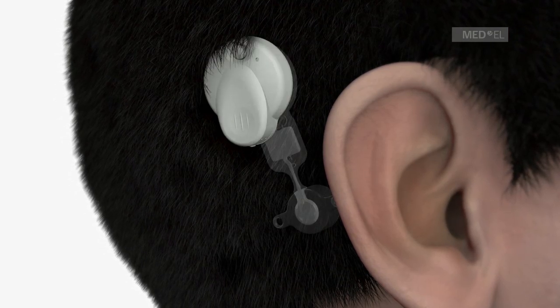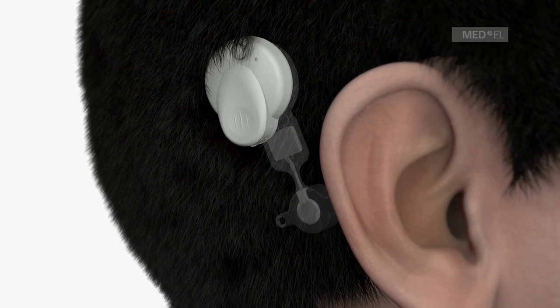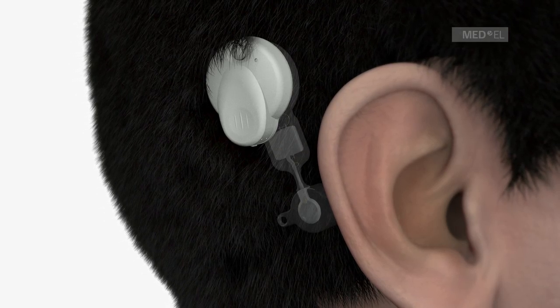The audio processor is held directly over the implant by magnetic attraction and can be comfortably worn under the hair.